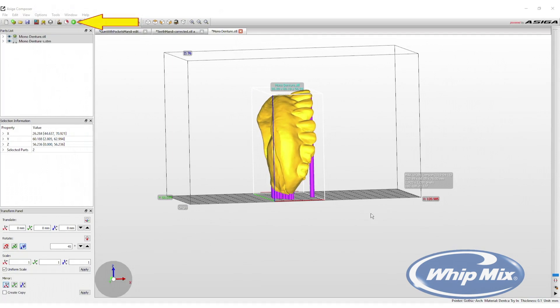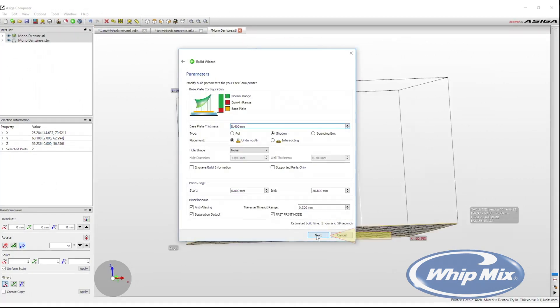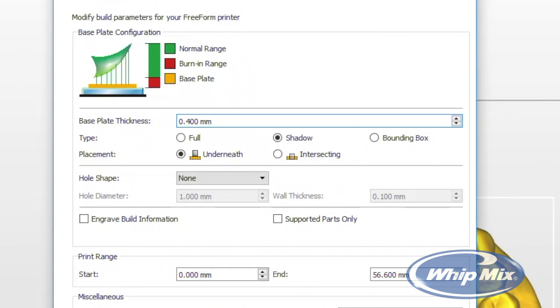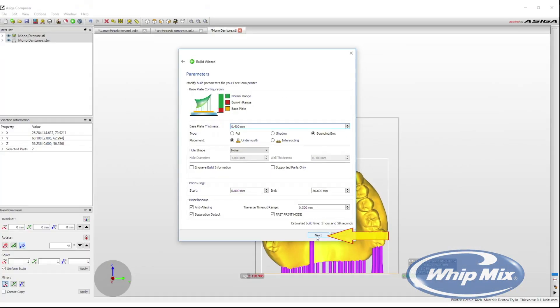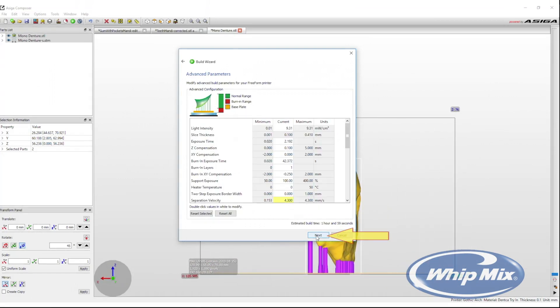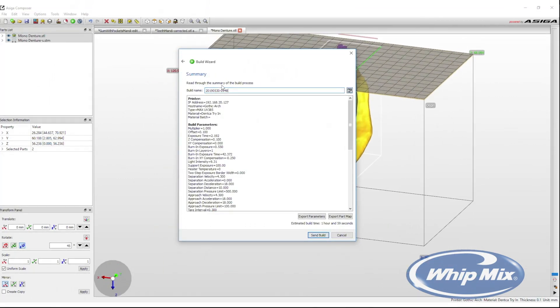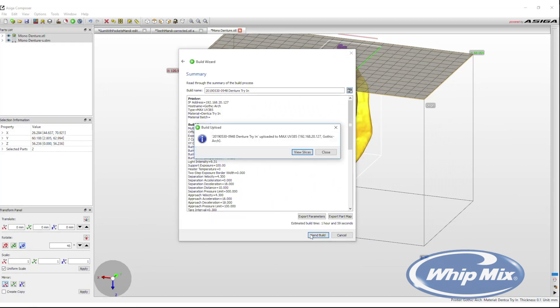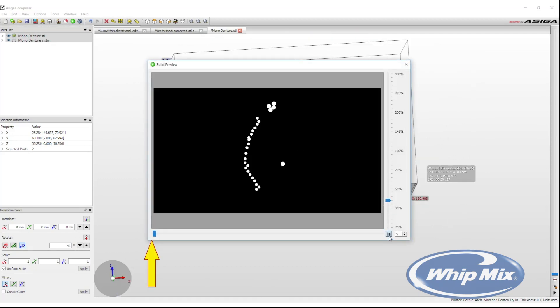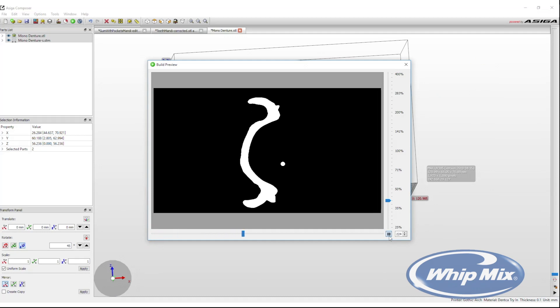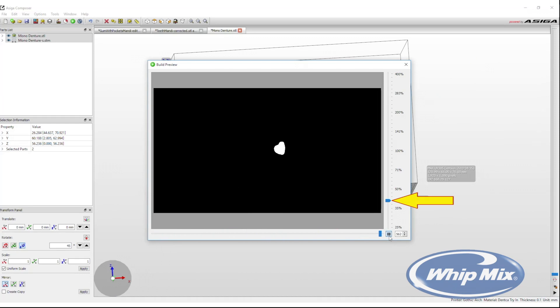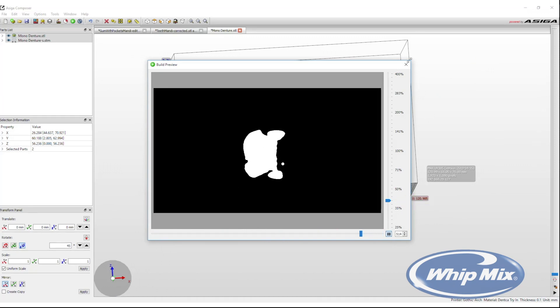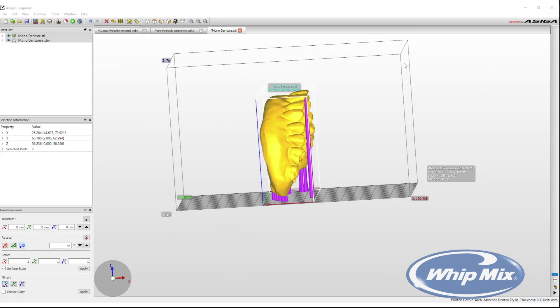Next, select the Build Wizard. Select Next and in the parameters window, change the type from Shadow to Bounding Box. Then select Next. Select Next again and in the summary, the build can be named. Click Send Build and the design will be sent to the printer. When the build is submitted, the slices or layers can now be viewed. In the build preview, the process arrow along the bottom can be moved to see how exactly the layers will be built in the printer. The slide on the right allows you to zoom in and out of the print preview. The printer will now complete the print process.